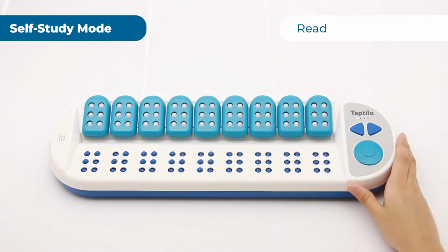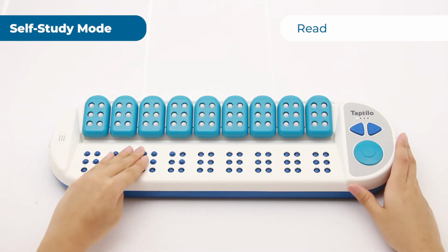Let's try another one. Gone. Read the Braille cells shown on the display and press the circle button when you're done.